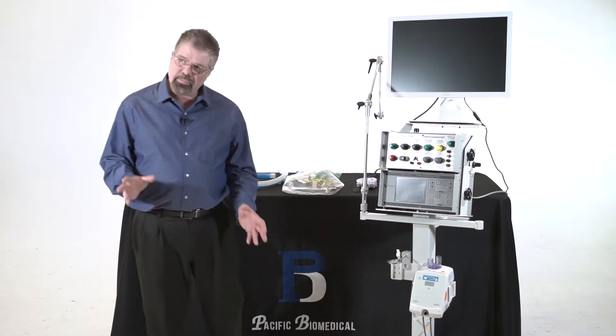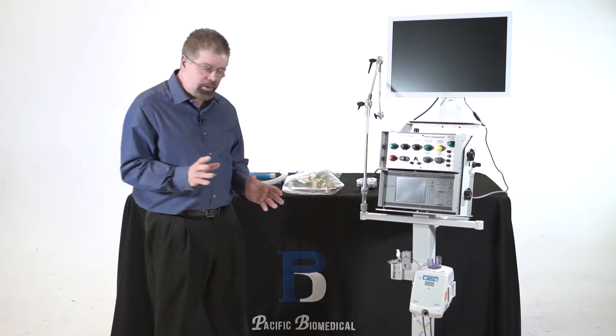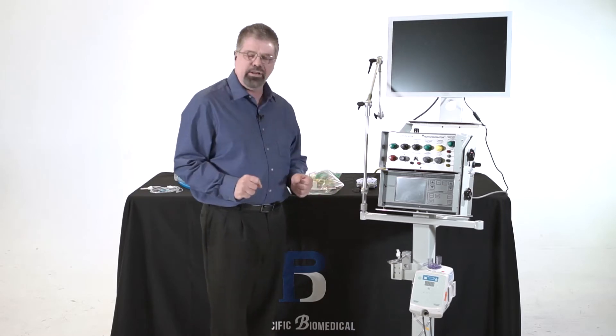All right, today we are going to talk about the VDR4, but we're really going to talk about putting the circuit on the VDR4.